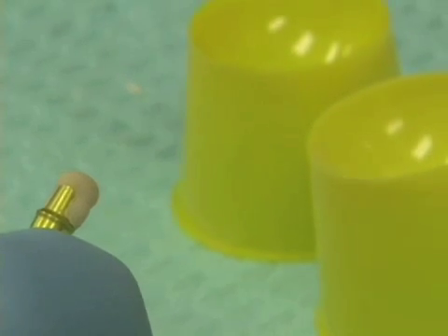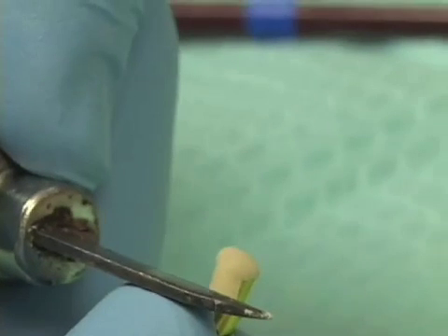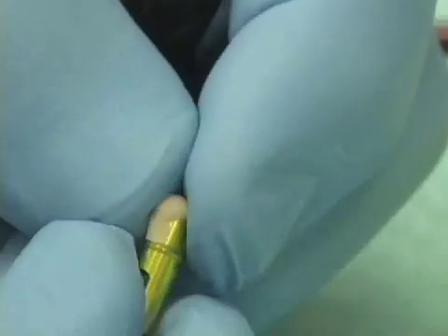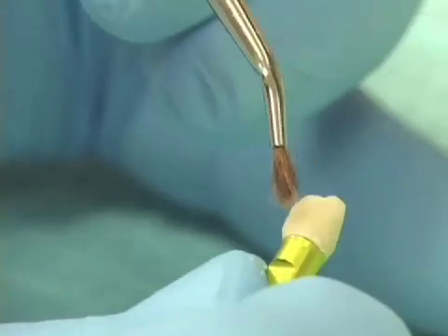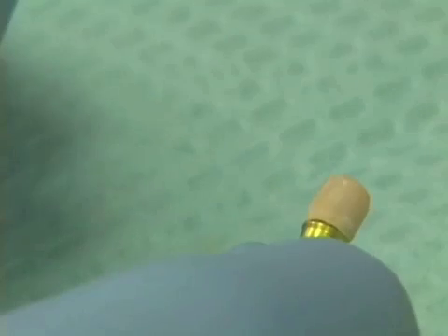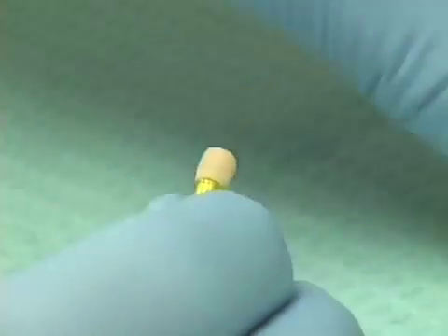When it's completely set up, firmly hold the base of the analog with your fingers, take a plaster knife or a buffalo knife and, using your thumb as a fulcrum, place the buffalo knife on and work this bit of acrylic so it comes off and on the analog. Once you see that it's free and comes off and on, go ahead and paint the remainder of the circumference — dip in the liquid, pick up some powder. So ahead of time, what we've made for our patient is this thin sleeve or coping for both the regular size and the wide body implants, whichever one we're restoring.